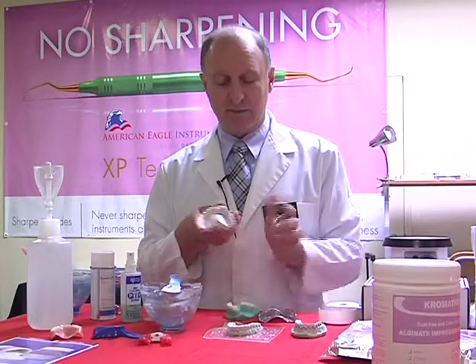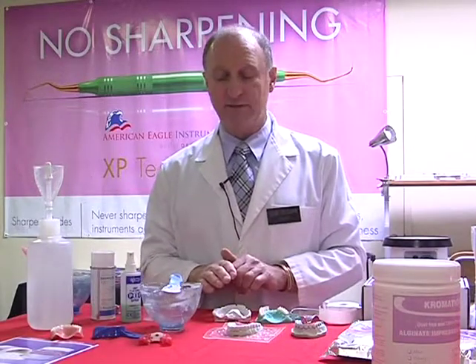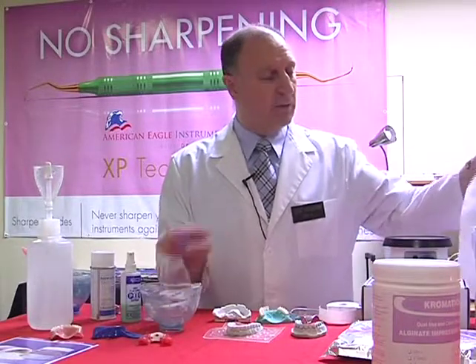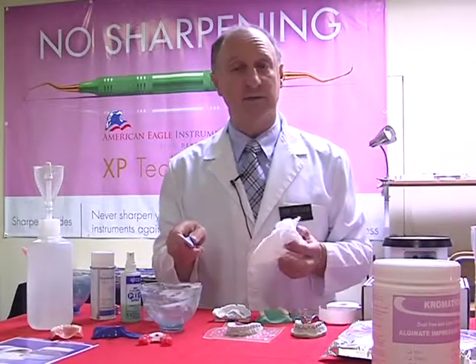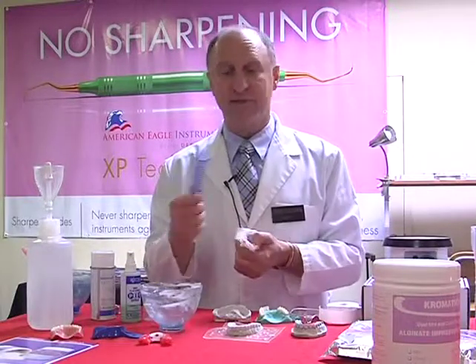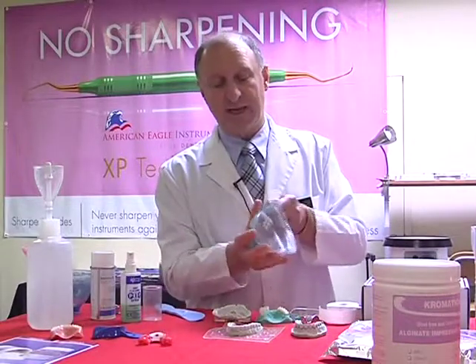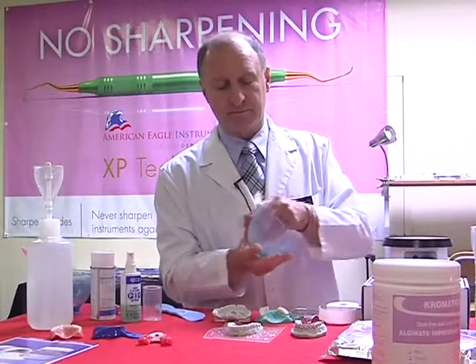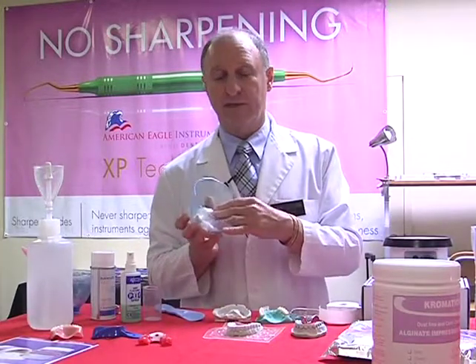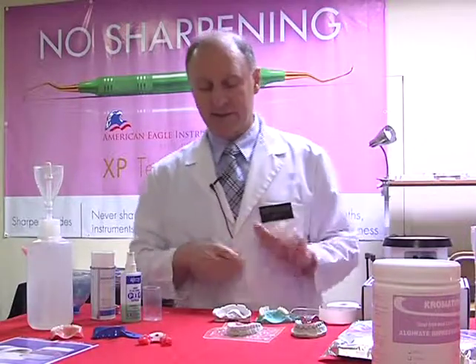At this point, we want to have a look at two things. Obviously looking at the accuracy of our material, but more importantly, let's look at our trays and our bowls. We have over here dirty bowls and dirty spatulas. We want to clean them. So the nice thing about this material is it cleans very well from the spatula, and the same thing from the bowl. So just a light pressure and away we go. So we've now cleaned up nicely, and let's look at how to store our material.